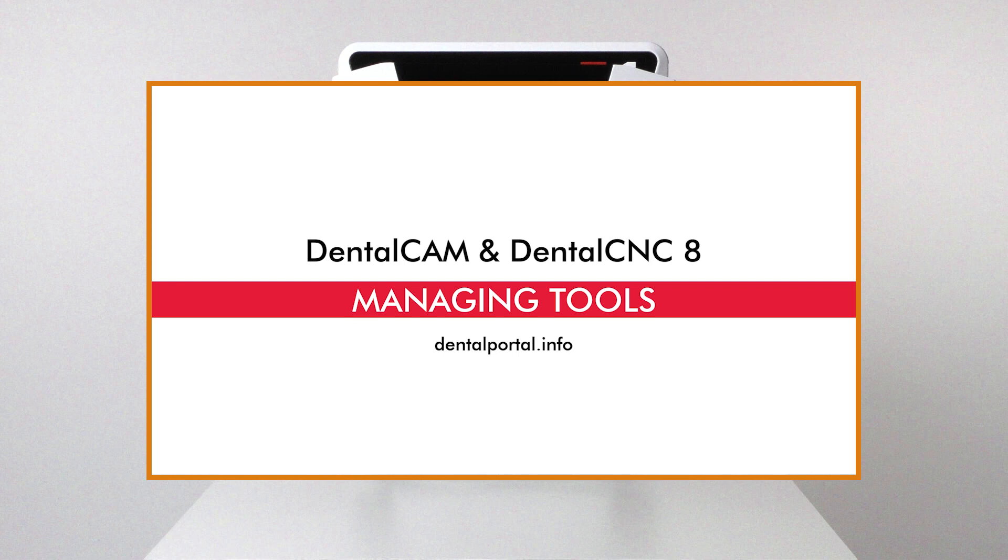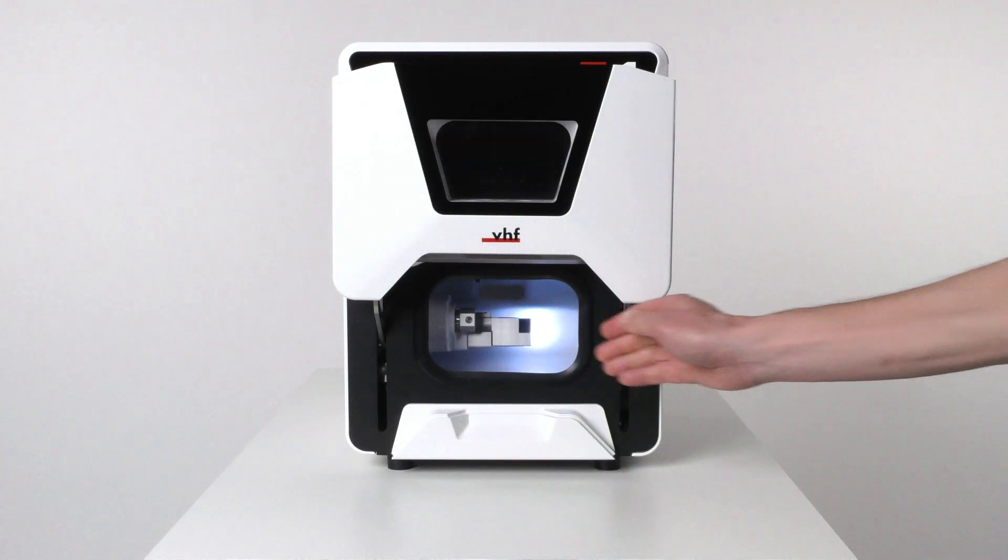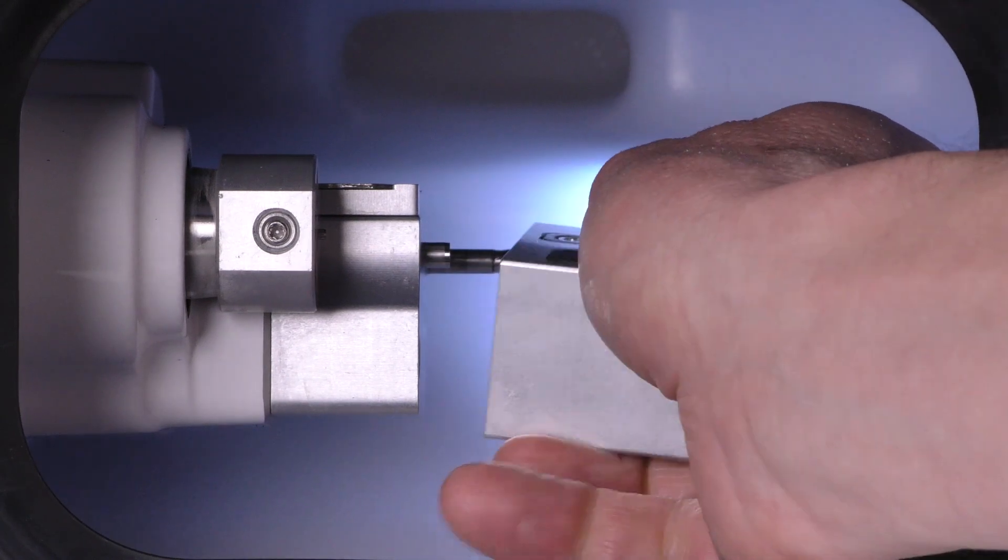We provide a separate video on how to manage tools in Dental CNC. You should get familiar with this activity. Let's insert tools into the tool magazine. Remove the tool magazine from the working chamber.